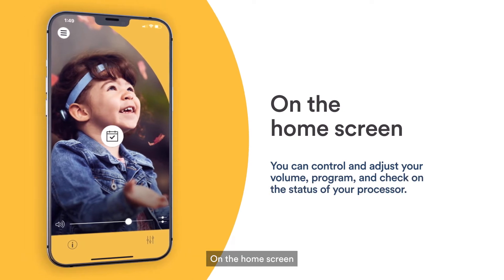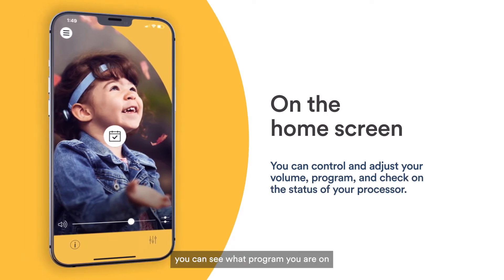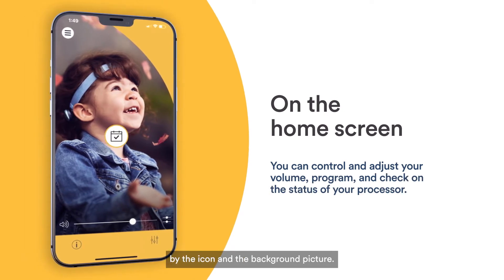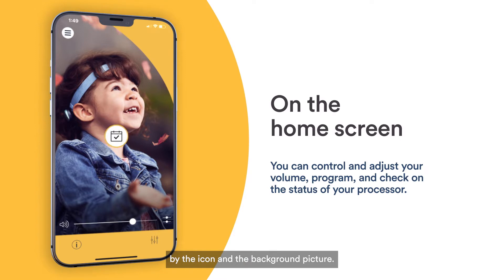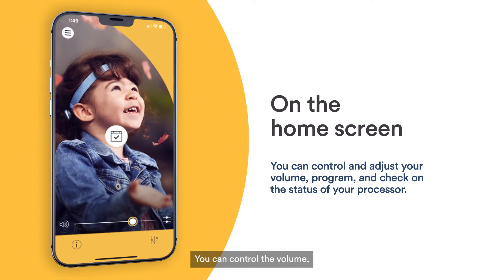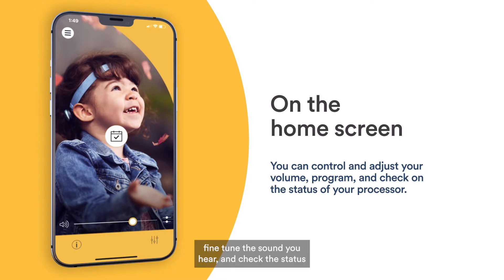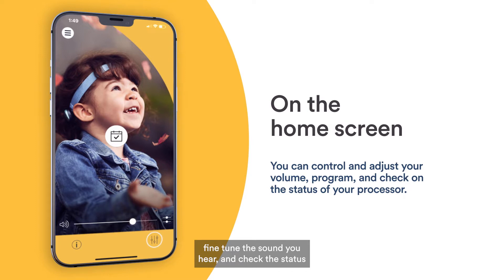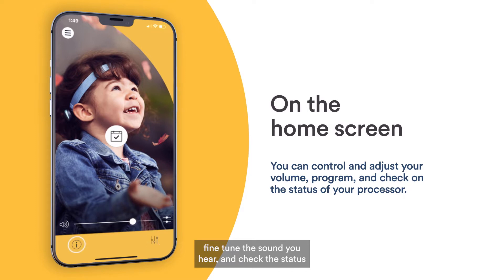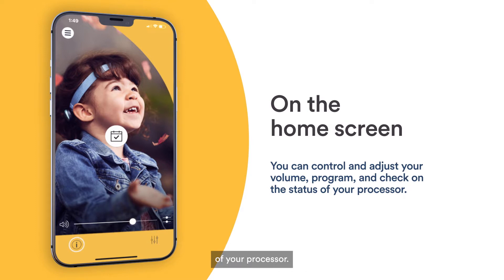On the home screen, you can see what program you are on by the icon and the background picture. You can control the volume, fine-tune the sound you hear, and check the status of your processor.